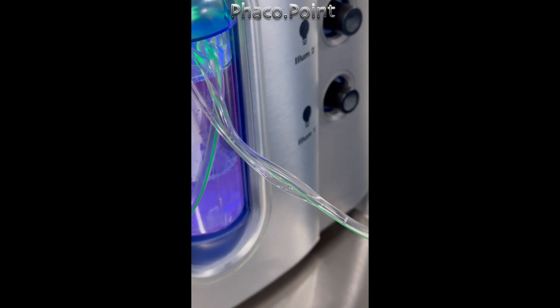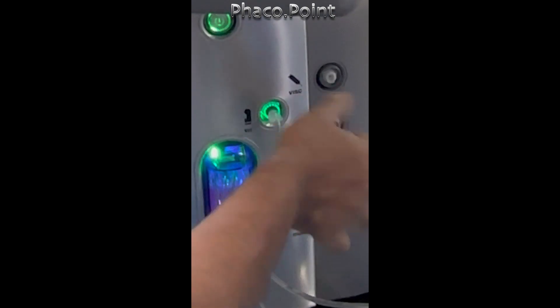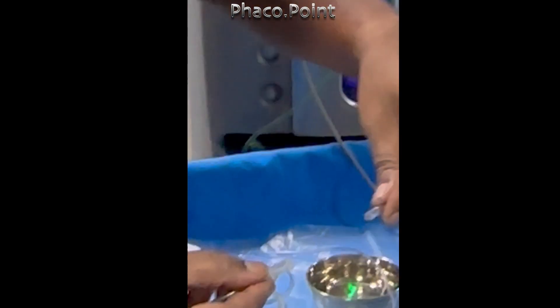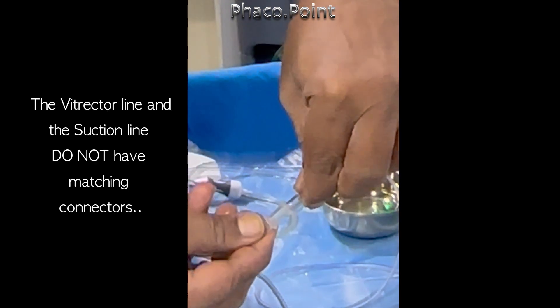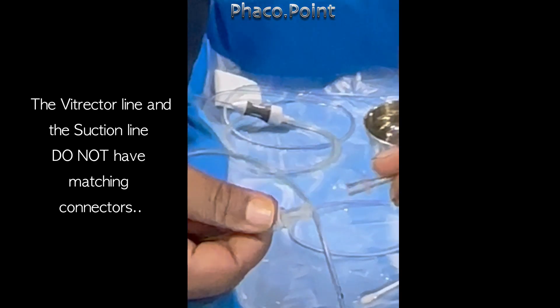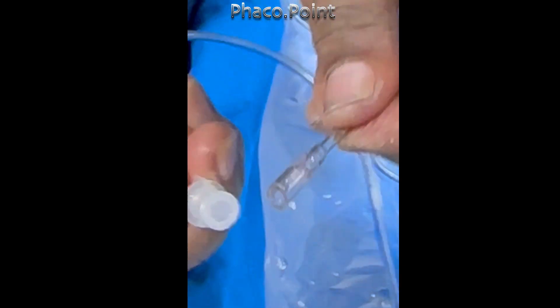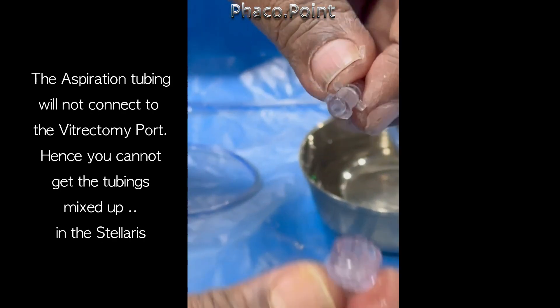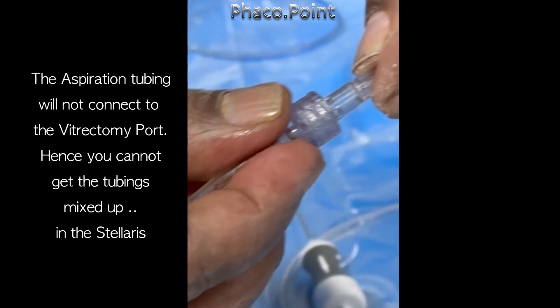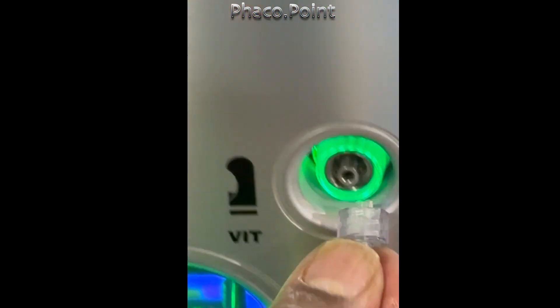So what can really be wrong with this cutter? Some people suggested that I got the tubings mixed up, but the truth is the portion that goes into the pneumatic drive of the vitrector will not fit into the aspiration line — at least in the Stellaris machine. Similarly, the aspiration line that connects to the aspiration will not go into the pneumatic drive of the vitrector in the Stellaris machine.